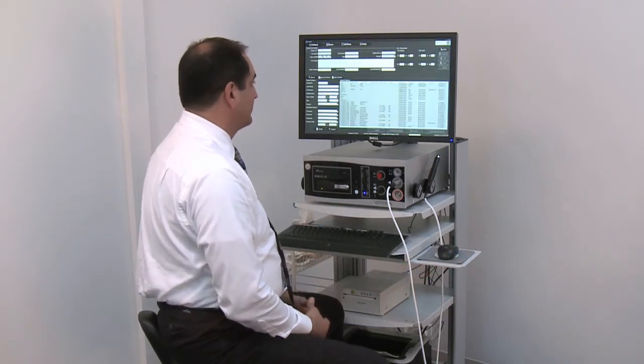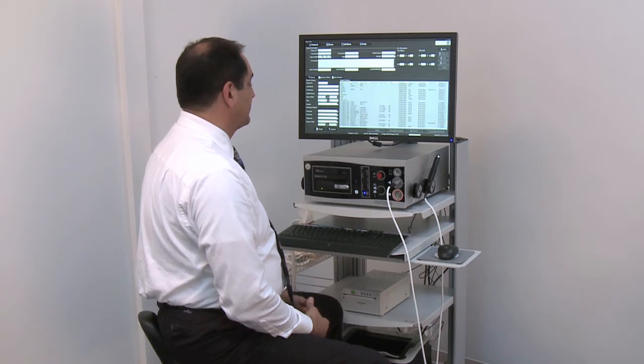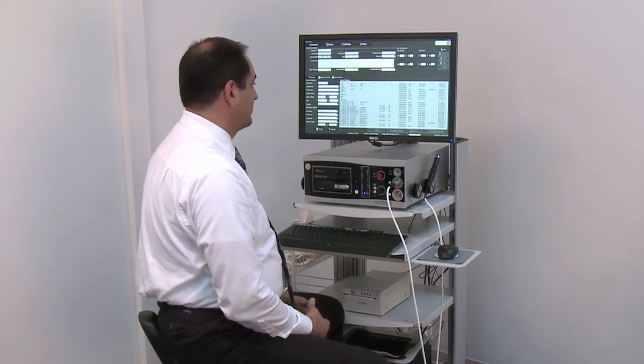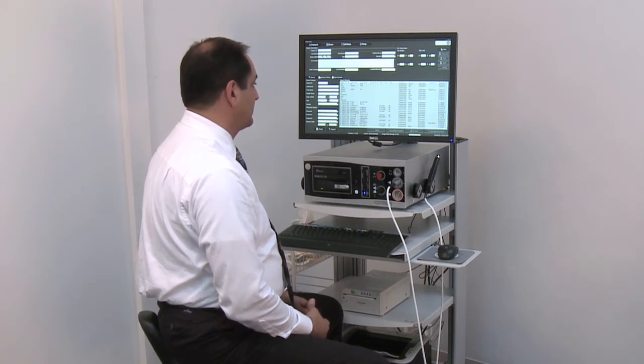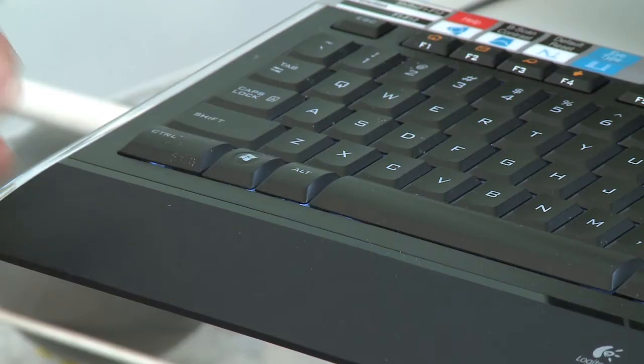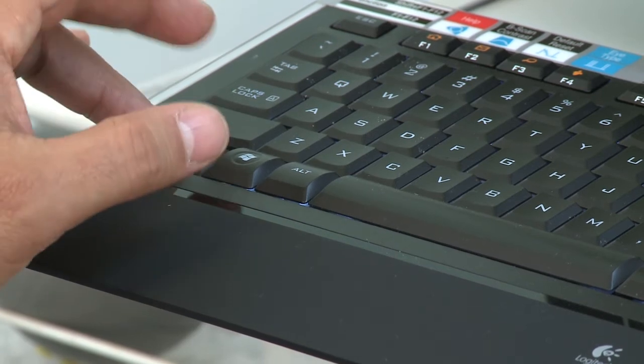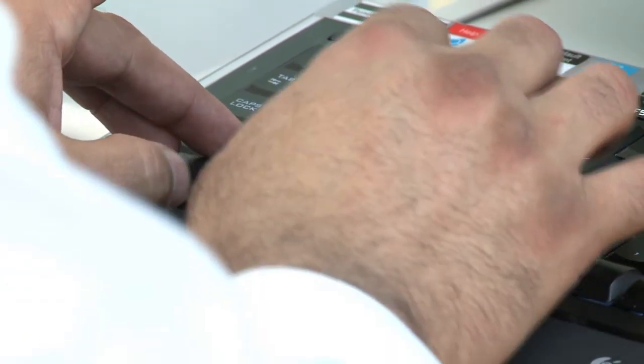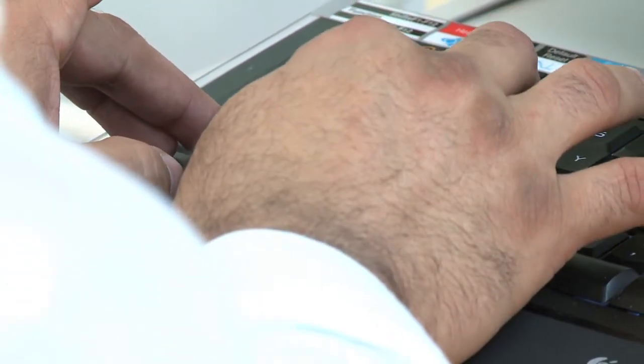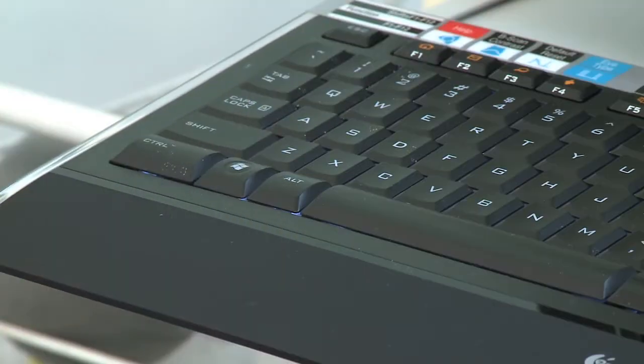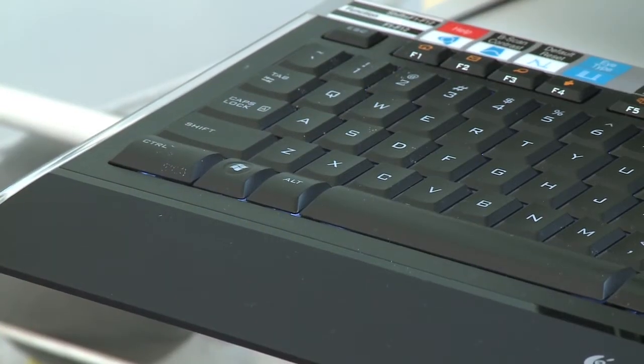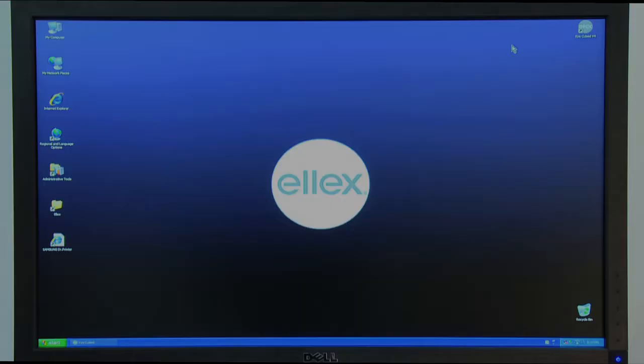As a first step, regional preferences and language can be entered. To change the language for the iCubed software, simultaneously press the Control, Alt, Shift and X keys to close the iCubed application.